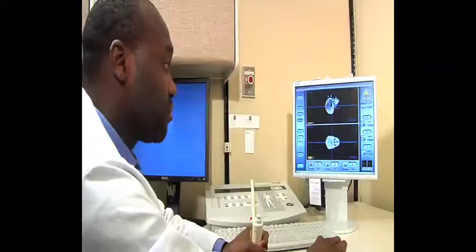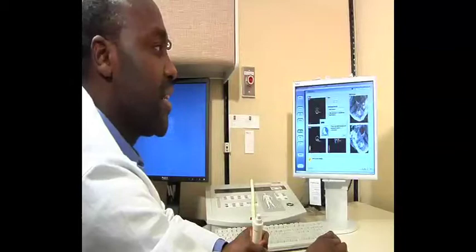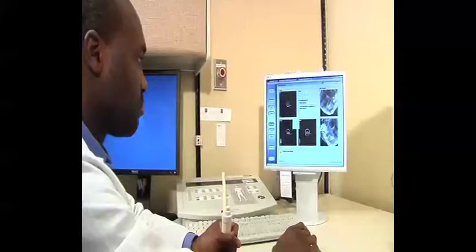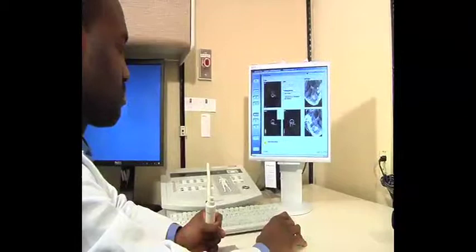I'm going to prep for x-ray correction. I'm going to capture the configuration of the infrared reflective markers, and I'm ready for x-ray correction.